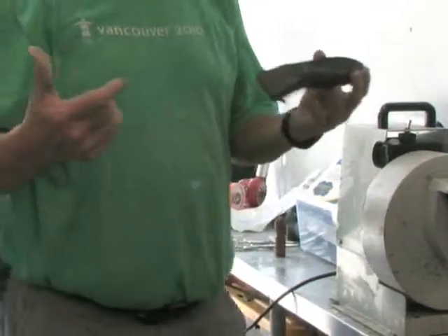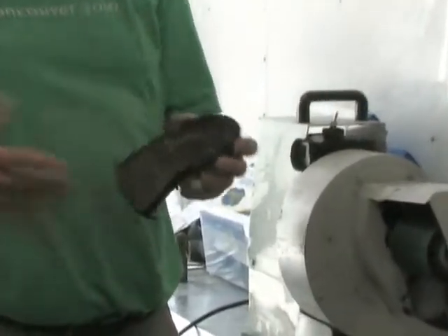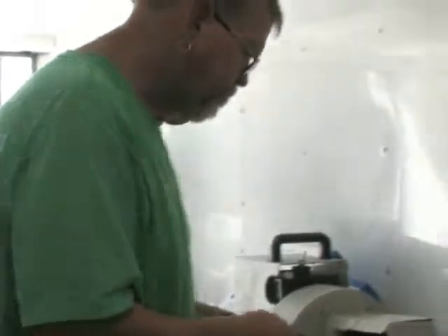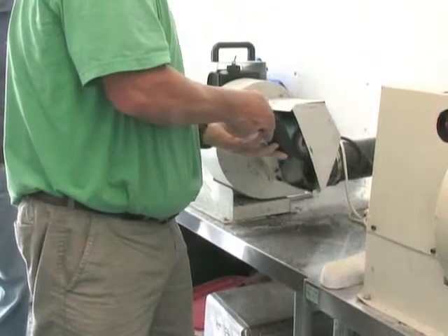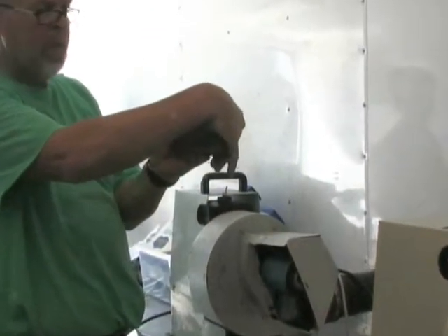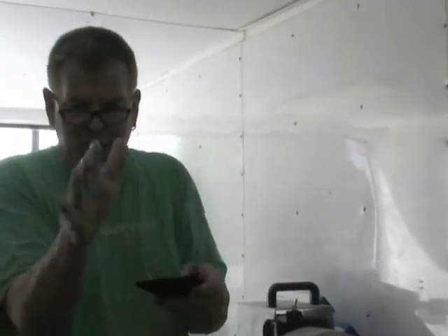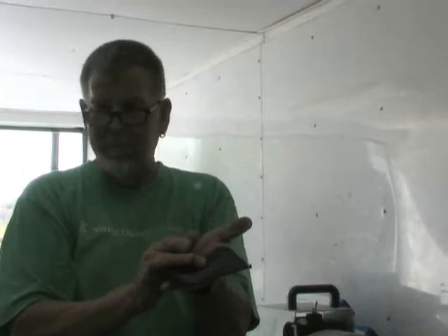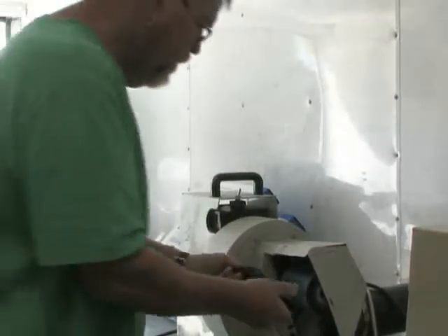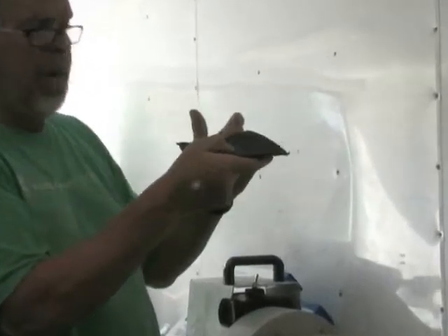I use my thumb — I carry it with me — I put the thumb right in the back of the heel so I can see how deep to make my heel cut: about half an inch. It has to be deep enough to control but shallow enough to go into the shoe. I start at the heel, work my way around — about an eighth of an inch over my thumbnail. The medial side is always higher in relationship to the lateral side — that way as your foot starts to roll inward, you have more meat over here to stop it.